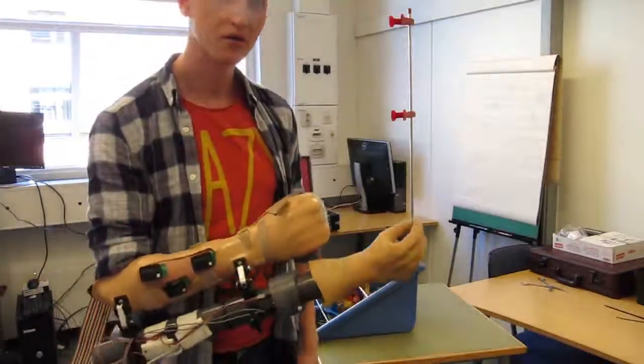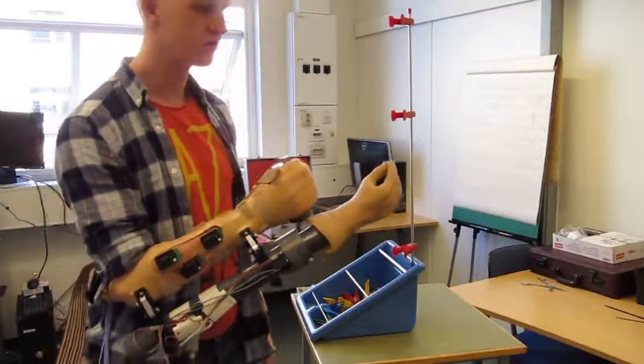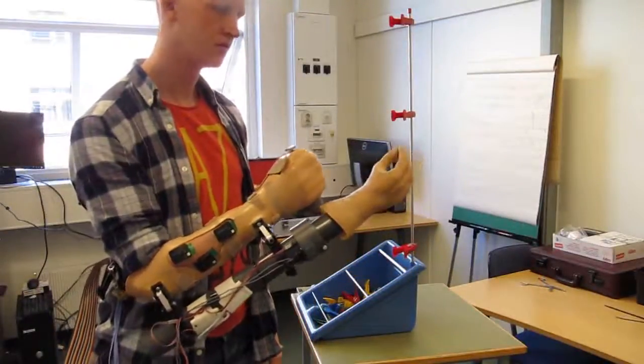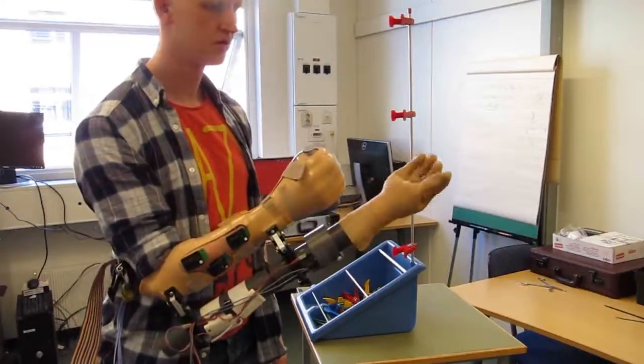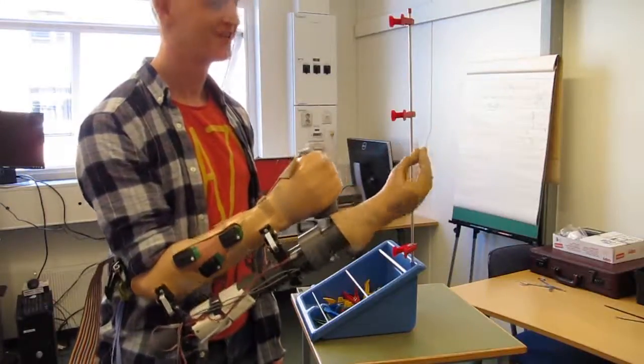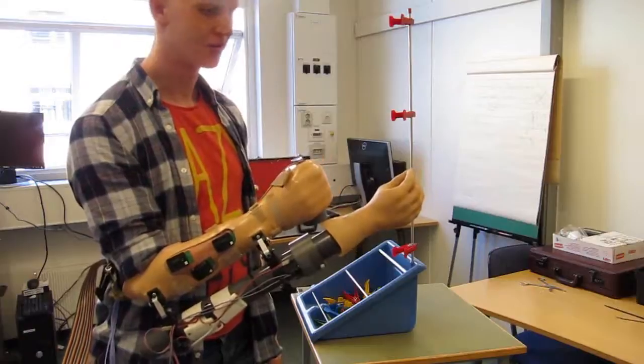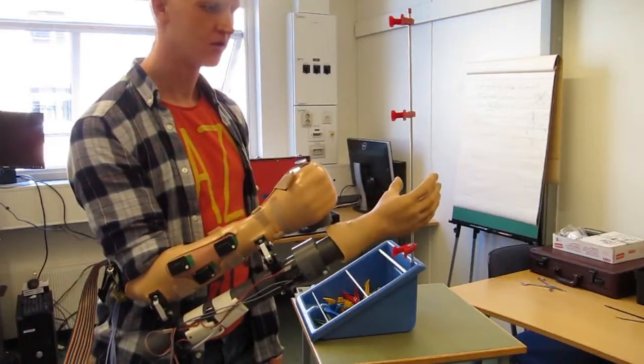All together this gives me the possibility to open, close, pronate, supinate, pronate, open slowly, close slowly.